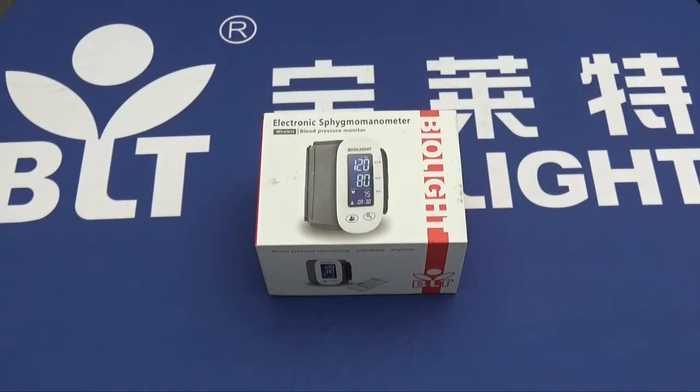Data can be stored for two separate users, each user getting 500 entries totaling at 1,000 separate entries. There are three different cuff sizes and the cuff is changeable, and the app is compatible with iOS and Android. All data recorded on the device can be simultaneously uploaded to the app, deleted, or recorded.